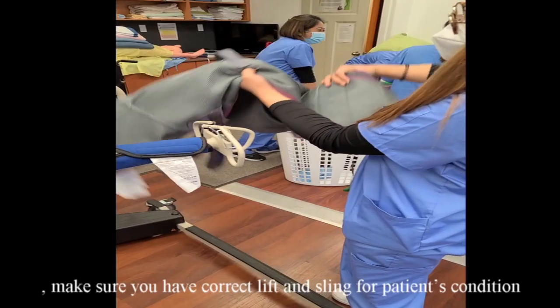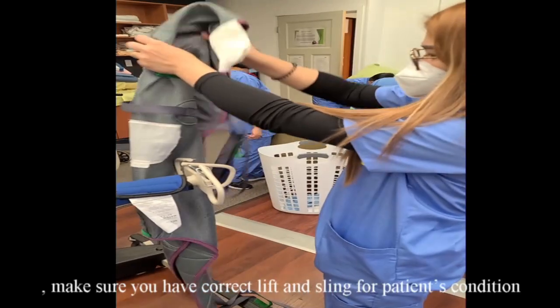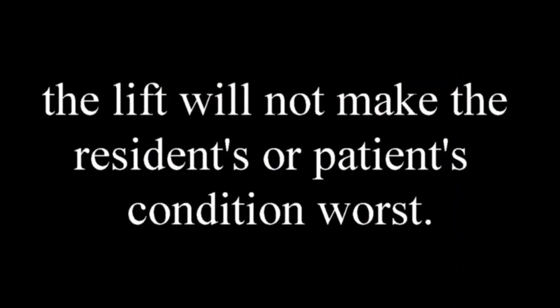Preparations. Before performing the lift, always read the care plan. Check for the patient's physical capabilities and medical condition. Make sure you have the correct lift and sling for the patient's condition and that the lift will not make the patient's condition worse.